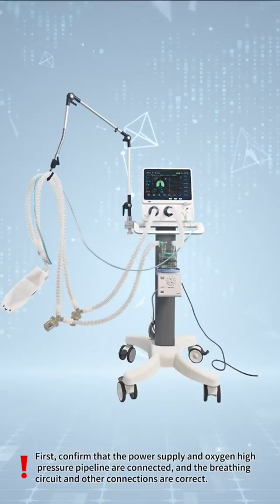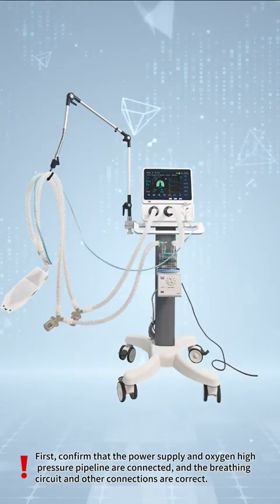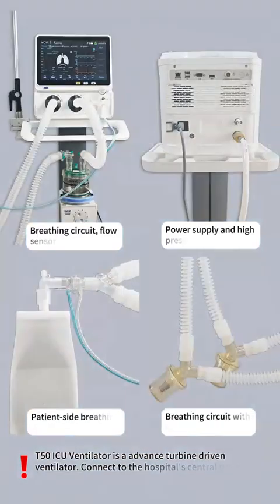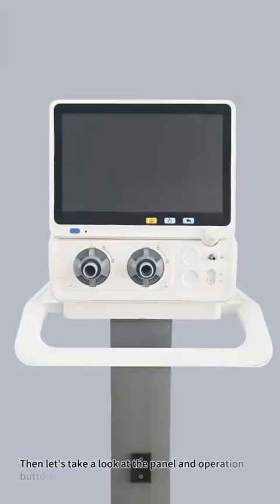First, confirm that the power supply and oxygen high-pressure pipeline are connected, and the breathing circuit and other connections are correct. The T50 ICU ventilator is an advanced turbine-driven ventilator. Connect to the hospital's central oxygen supply or oxygen cylinder, both OK. Then let's take a look at the panel and operation buttons of the T50 ventilator.